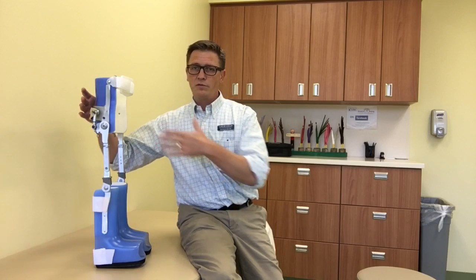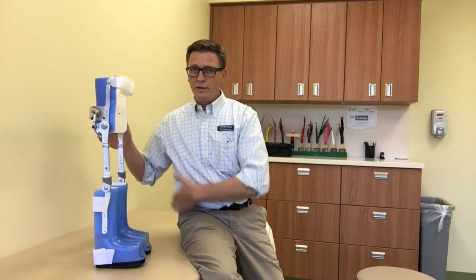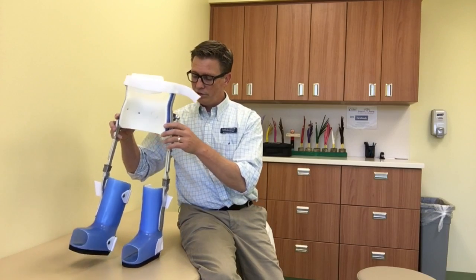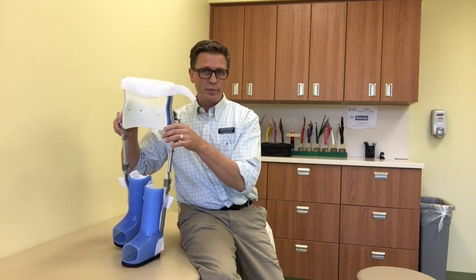This brace, because it's a full body system, supports the trunk and the hips and the knees and the ankles and maintains that vertical position. It also reciprocates — it's called a reciprocating gait orthosis — so the two legs move in a reciprocal pattern.